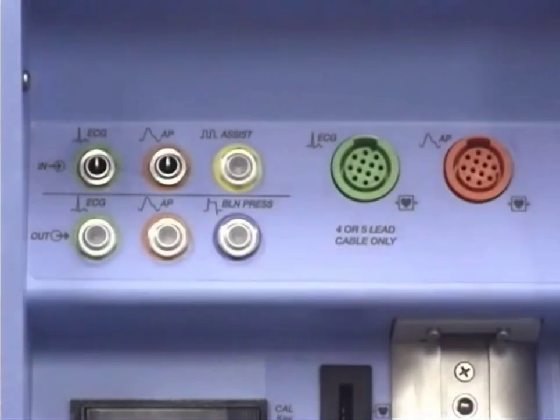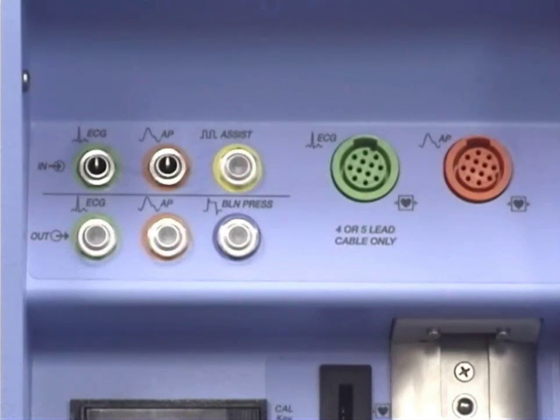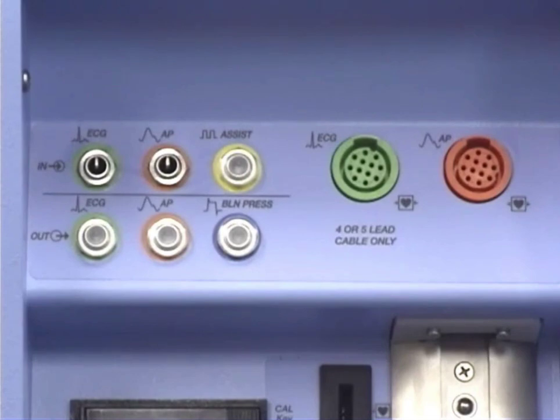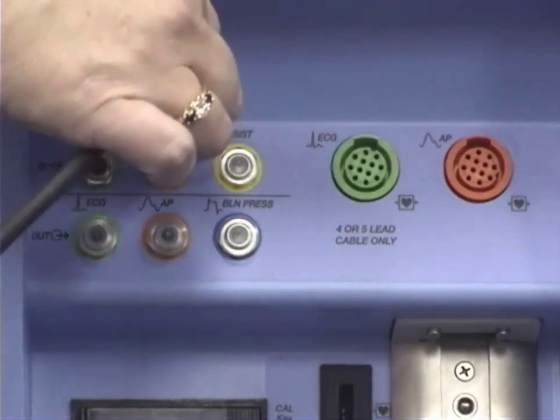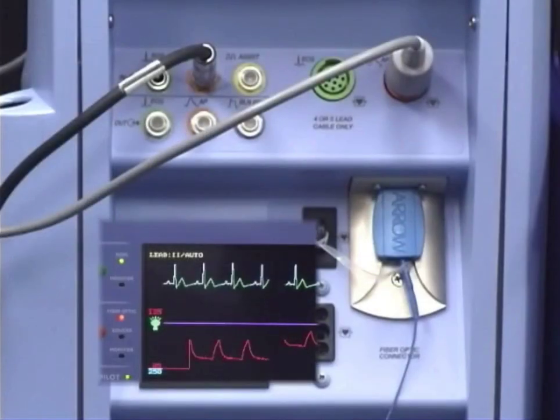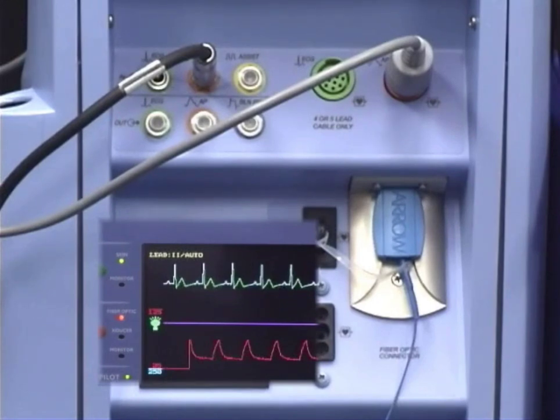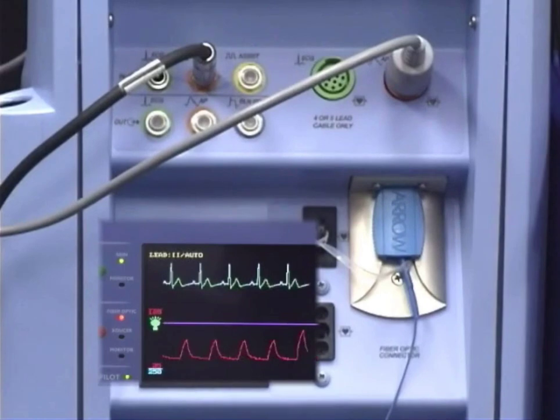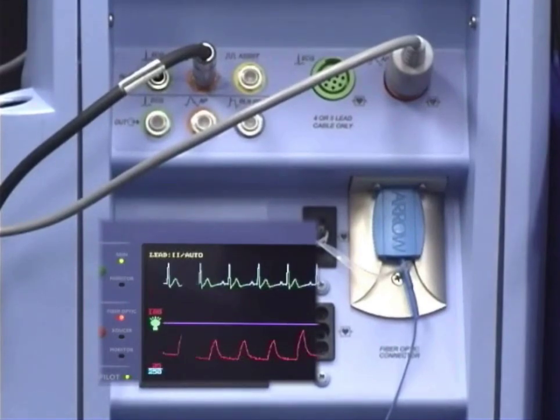The final option is to use a monitor interface cable to slave the arterial pressure from the bedside monitor to the pump. Plug the appropriate end of the cable into the AP out on the monitor and the other end of the cable into the AP input on the balloon pump. If multiple or all AP sources are connected, the light wave FOS signal will be selected in the AutoCAT-2 Wave and transducer will be selected in the AutoCAT-2.